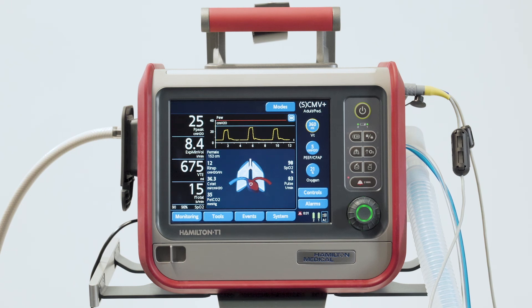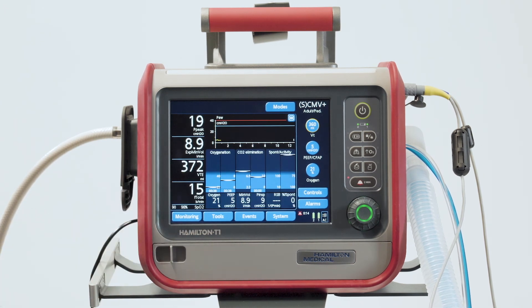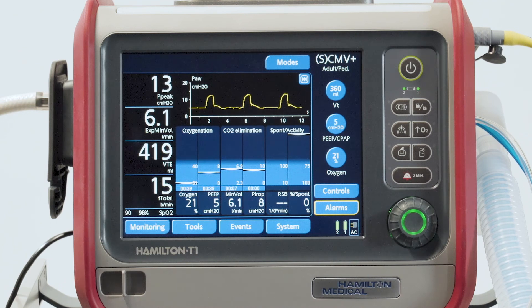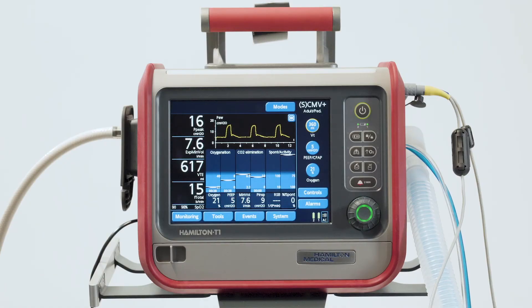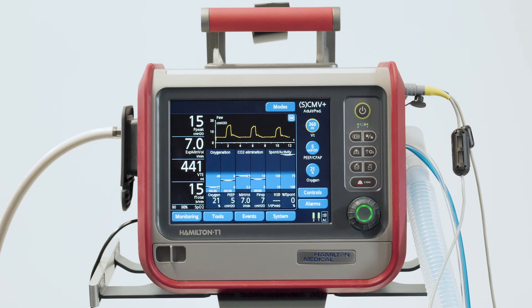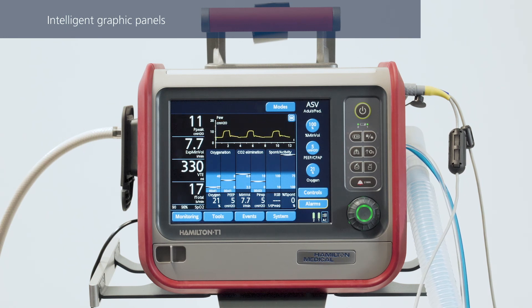The lungs expand and contract in time with the patient's actual breaths. You can also use the vent status panel to see how dependent the patient is on the ventilator. Six parameters relating to oxygenation, CO2 elimination, and the patient's breathing activity are displayed next to one another. Each parameter has a floating indicator that moves up and down as the value for that parameter changes.